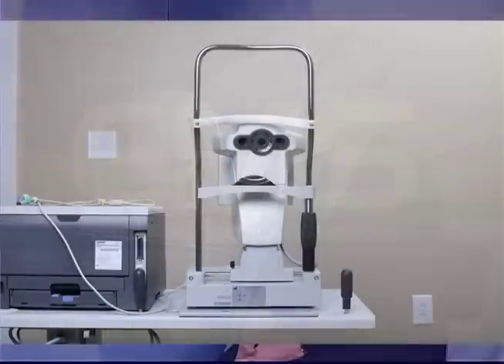Axial length measurements with the IOL Master are fast and distance independent. Even the penetration of dense cataracts has improved significantly since the early days of optical biometry.